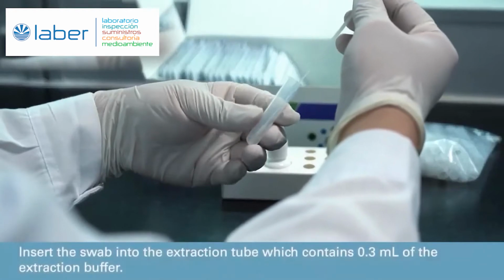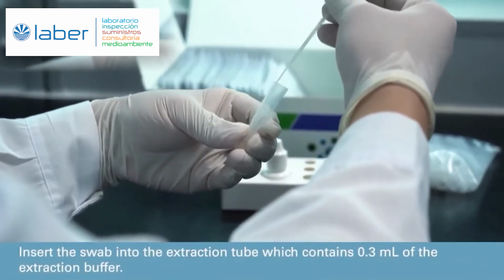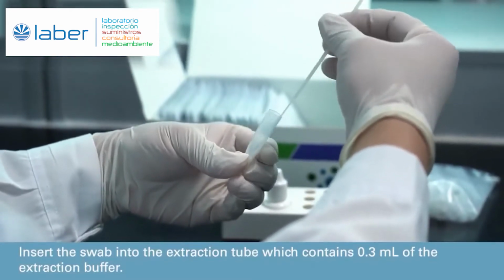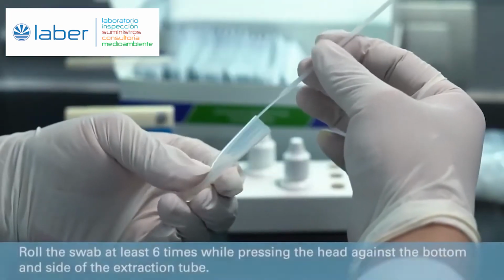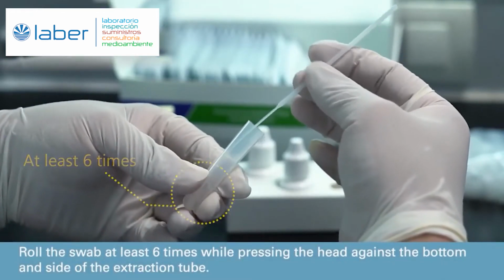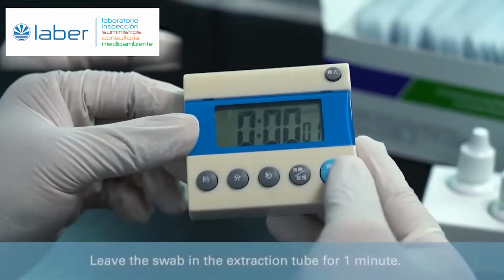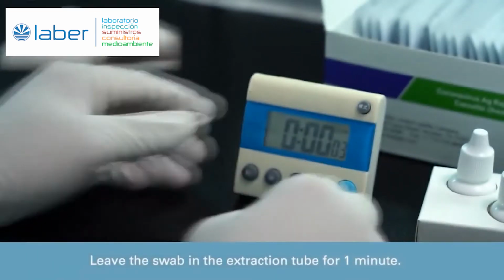Insert the swab into the extraction tube, which contains 0.3 milliliters of the extraction buffer. Roll the swab at least 6 times while pressing the head against the bottom and side of the extraction tube. Leave the swab in the extraction tube for 1 minute.